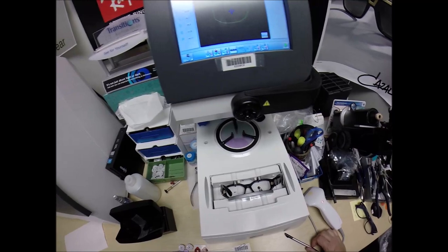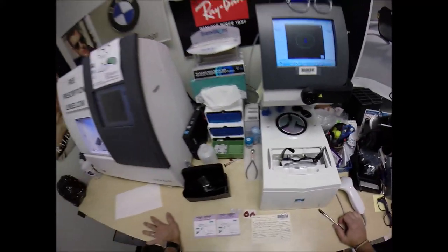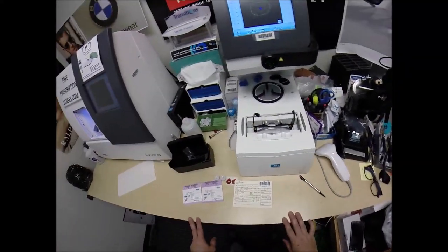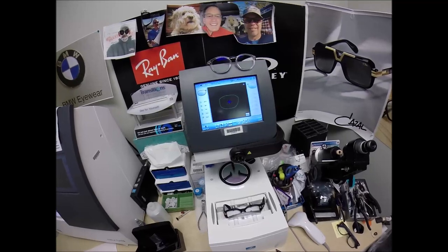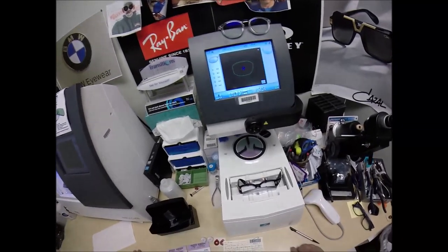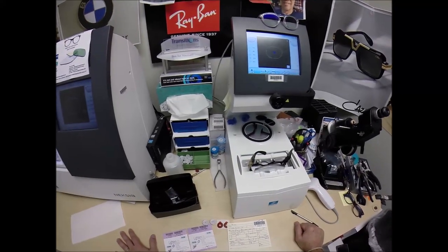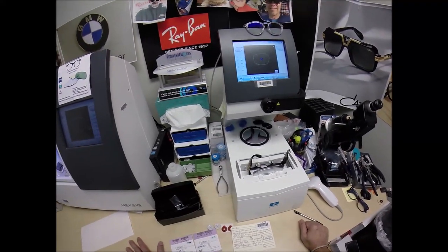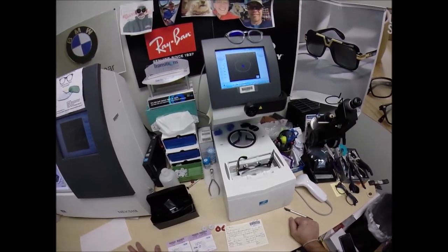You buy any genuine authentic Versace frame and you'll receive one free pair of clear single vision prescription lenses or non-prescription fashion lenses. My receipt has my federal ID tax number, so if you have vision insurance or unused health savings account flex dollars, you will get reimbursed for this purchase. I'm considered out of network as far as insurance goes, but I can give you an itemized receipt for your out-of-network reimbursement and you'll get a full reimbursement from your health savings account.